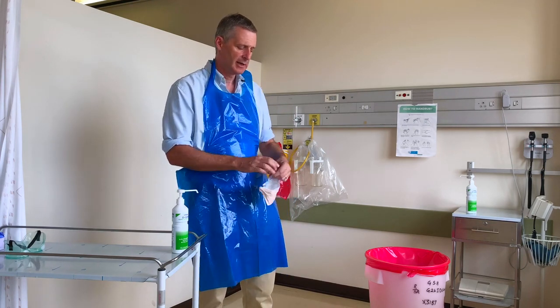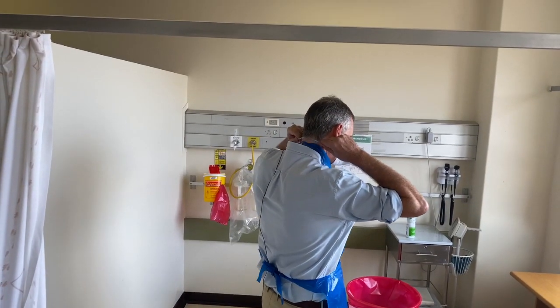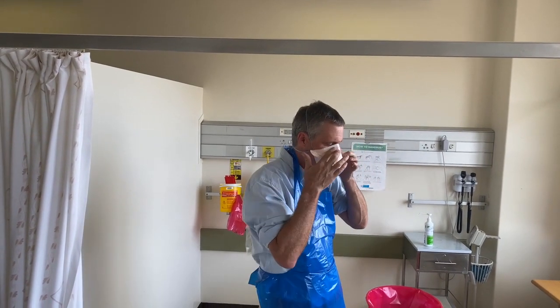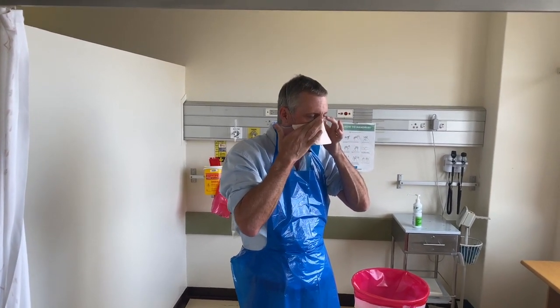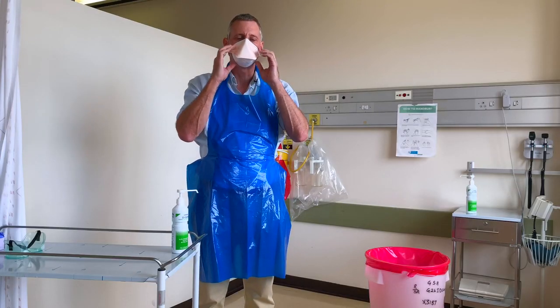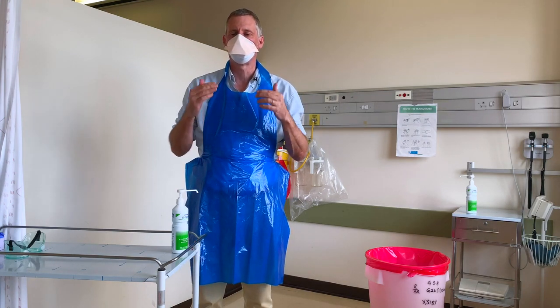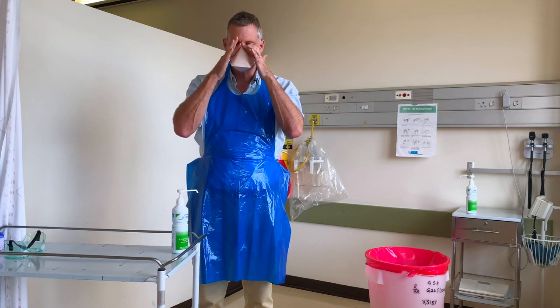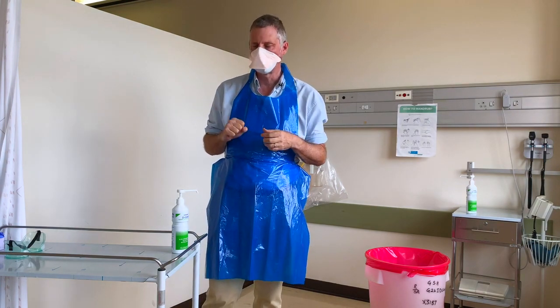I'm going to demonstrate the N95 respirator today. There are two straps: one strap goes below the ears, the other above the ears, and then we mould the respirator at the top. It has a metal band so we mould it onto the nose, ensure the surfaces are aligned to the face, and then test by breathing in and out — checking there is no air leakage. Take your time at this stage to be absolutely sure it's well moulded.